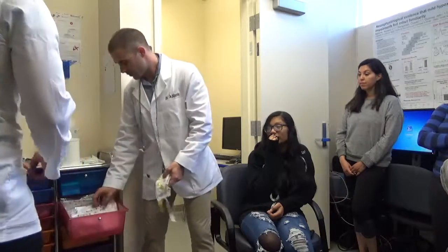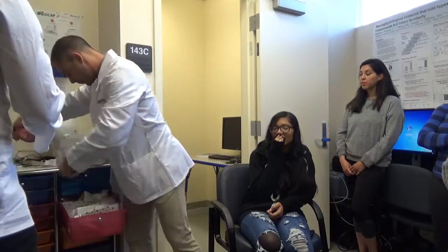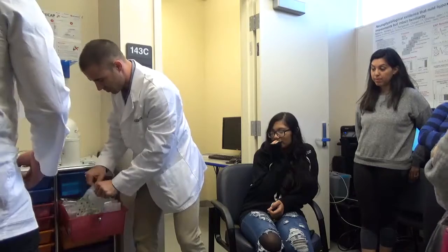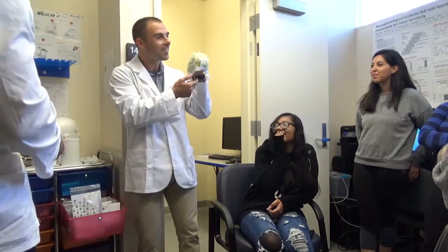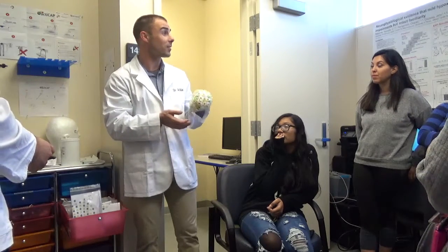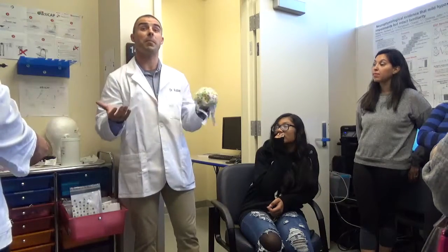Here's a whole bunch of our caps. Now, we have a huge one for people with huge heads. I'm just going to take this off for now. So, there's huge caps in there. There's also, just for fun so you can see, a little bit of baby hat. You can do infant research with ERPs. This is one of the benefits of EEG, right? It's tough to get an infant to sit still in an MRI scanner, but it's a little easier with EEG because at least they can sit on their mom or dad's lap.